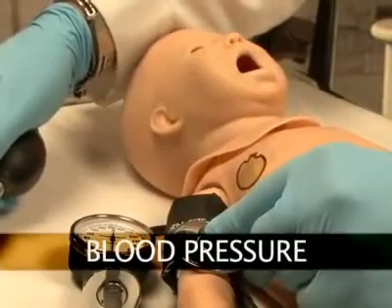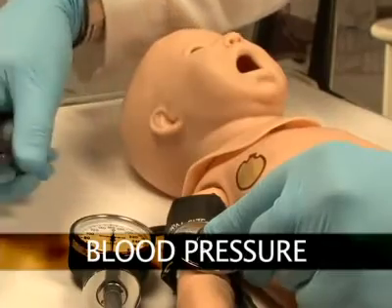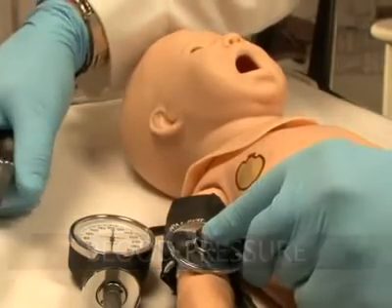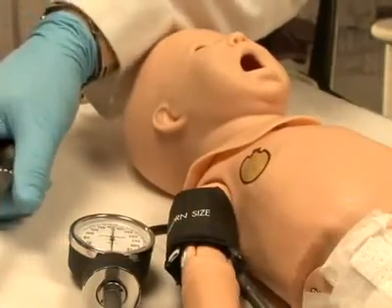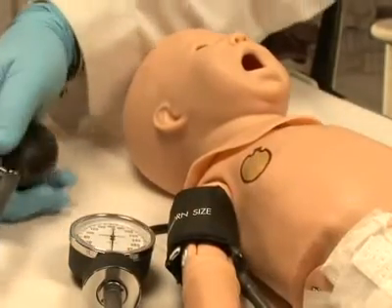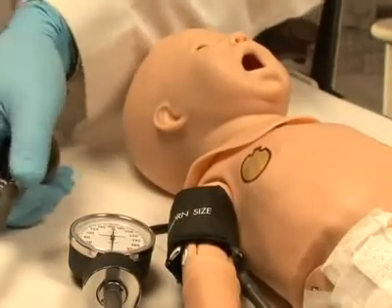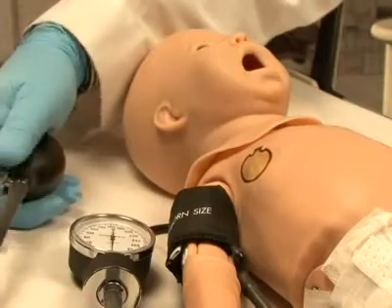Programmable blood pressure can be read using a sphygmomanometer and users can auscultate the Korotkoff sounds.